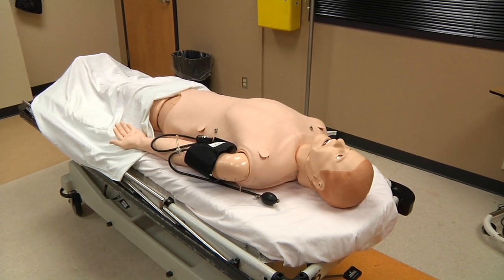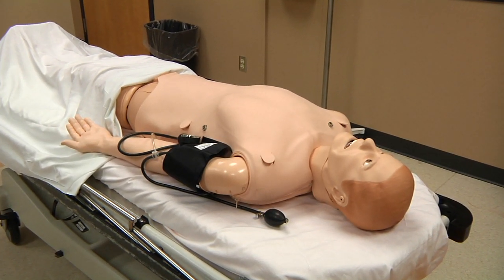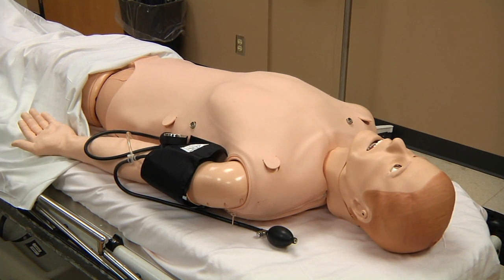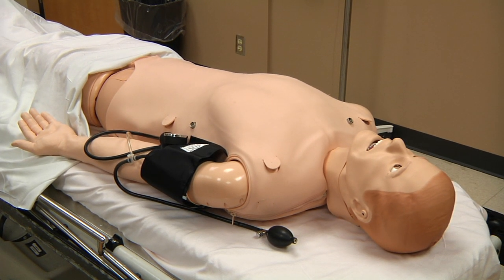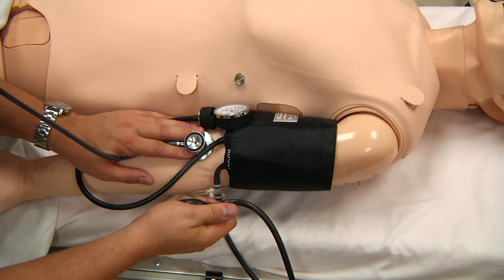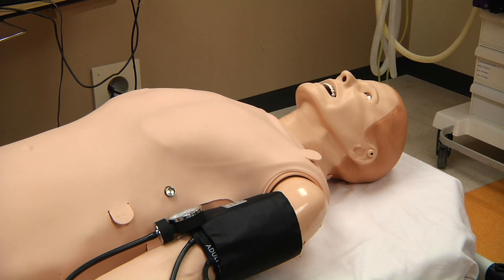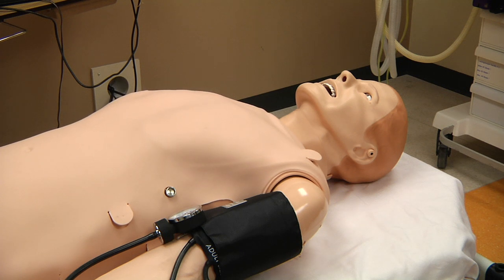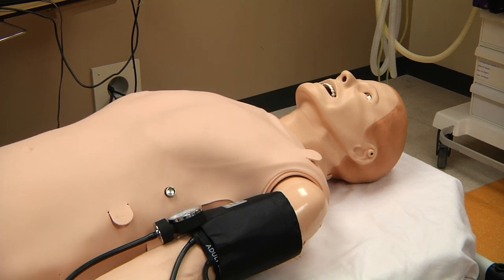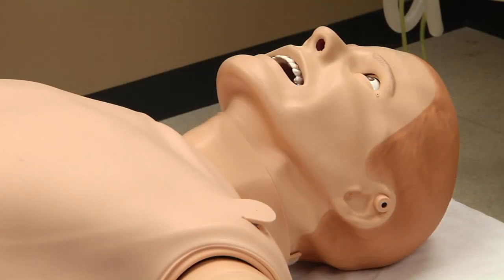Embedded beneath the skin are a series of small speakers that produce normal and abnormal heart sounds, lung sounds, and bowel sounds. Korotkoff sounds may also be heard when taking an auscultated blood pressure in the left arm. Interacting with the simulator is easy, as the operator may speak through the simulator via a microphone, along with a set of pre-recorded vocal sounds.